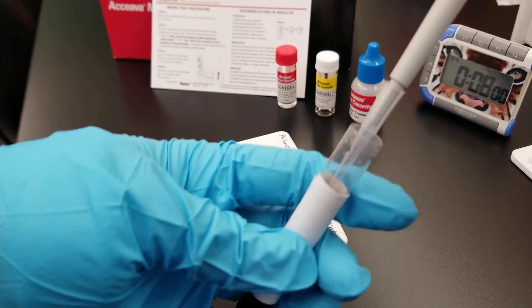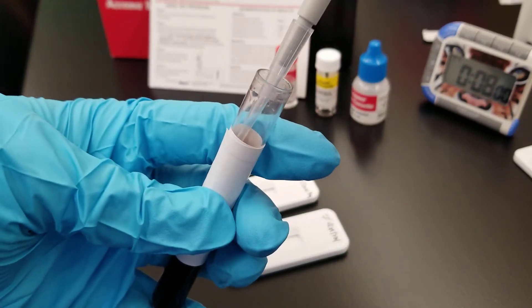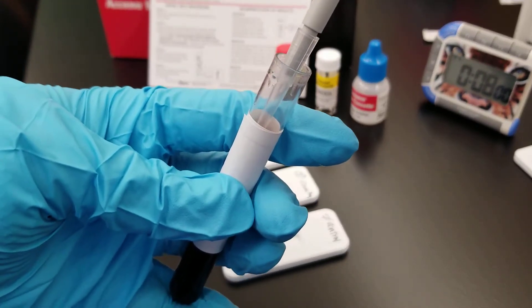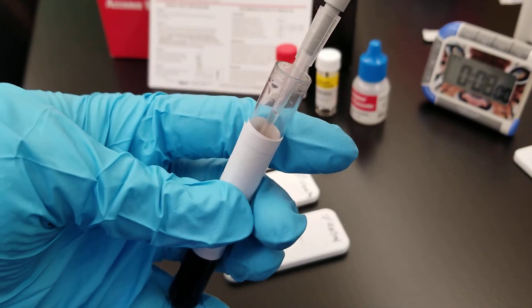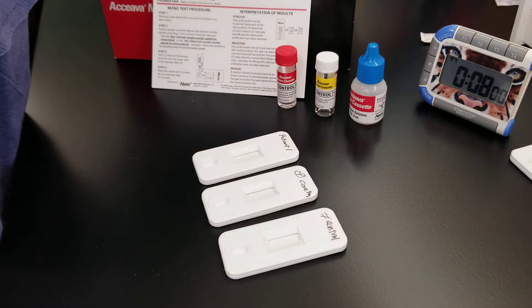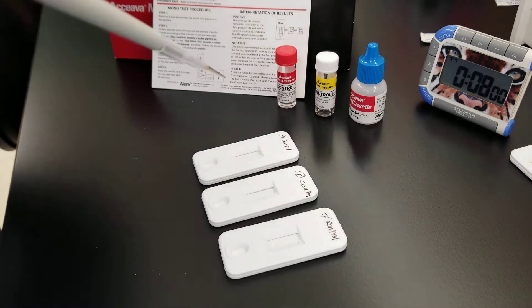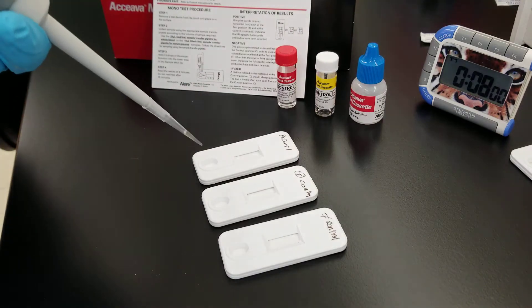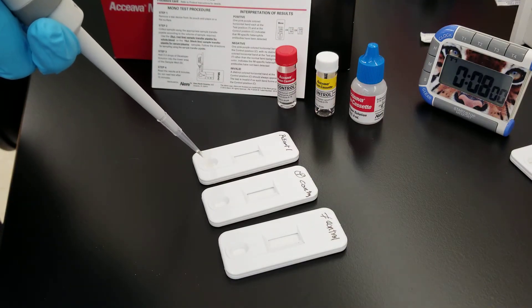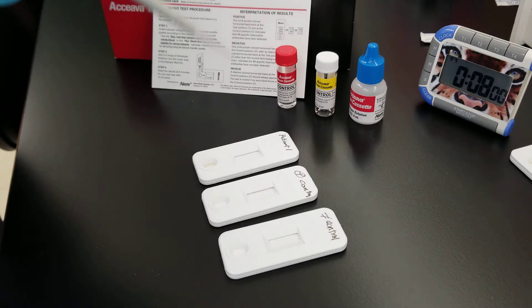We're going to put that in there and pull it up. There we go. This is the specimen well right here. We're going to add the buffer solution to it also.